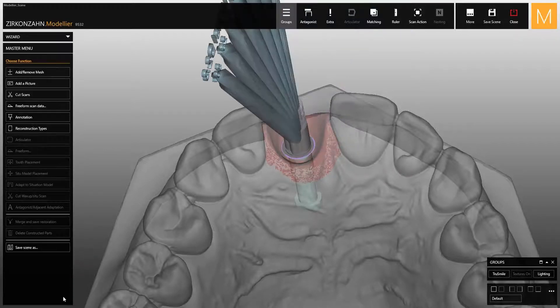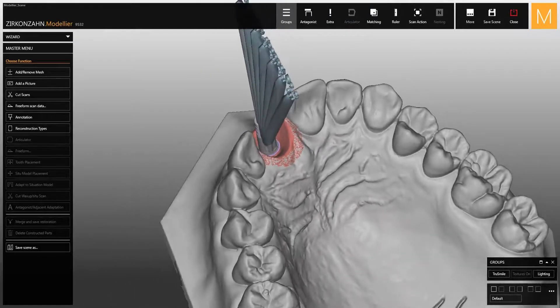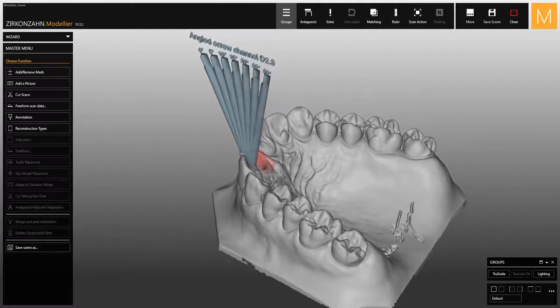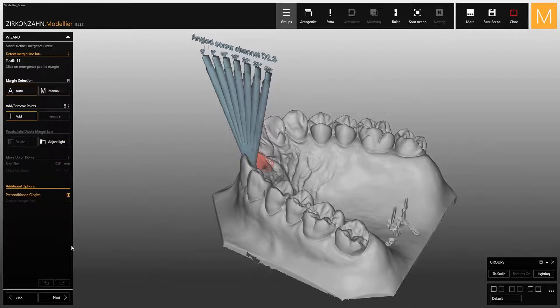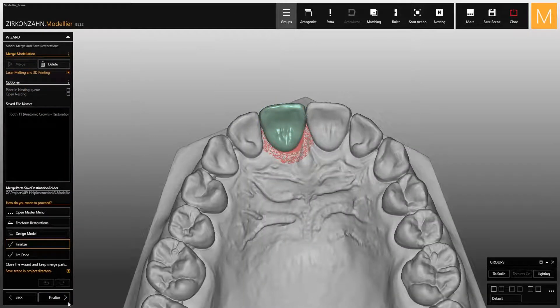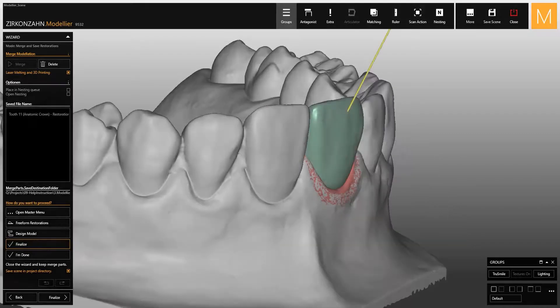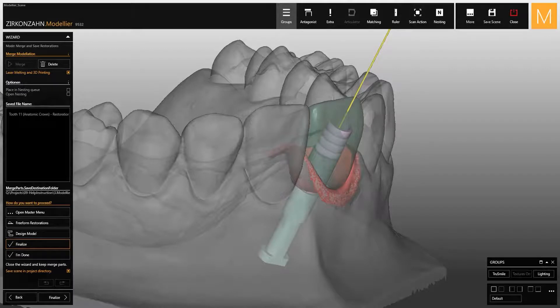The screw channels are correctly oriented towards the palate and you can then start designing the crown. When you reach the end of the wizard, the crown does not have the screw hole yet. This is the only view that will be displayed, which you do not need to worry about, as it will not make any changes to your restoration.